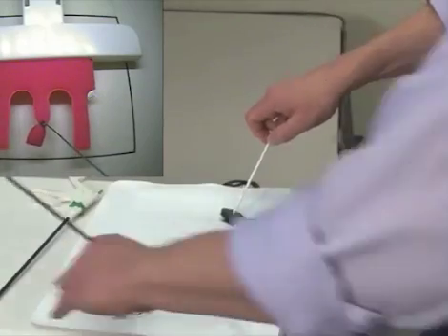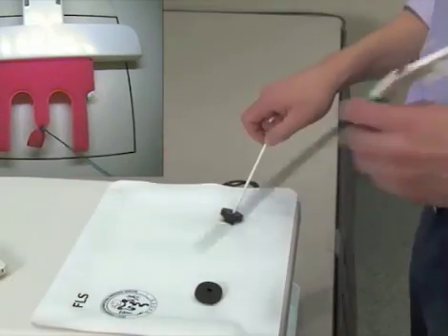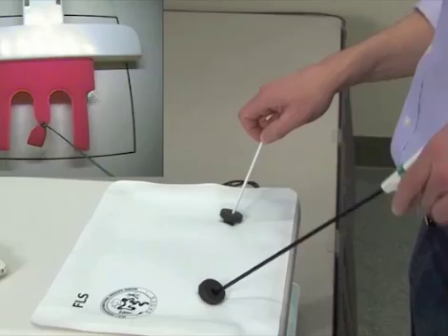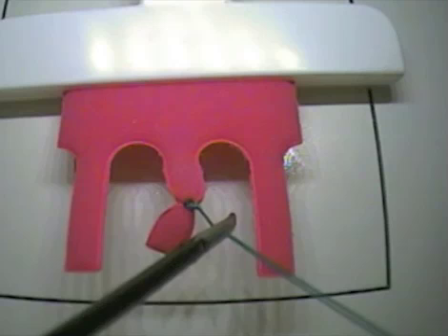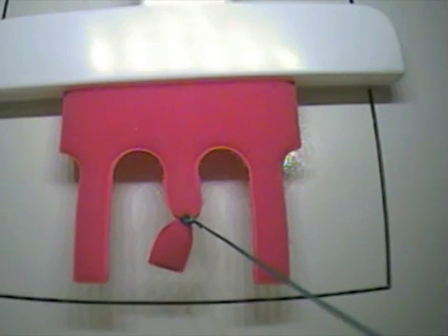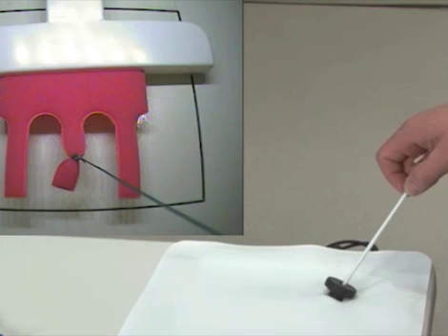Please note to use a grasper instead of scissors to grab the endo-loop material to simulate making a final cut, as you would during the endo-loop task during the actual FLS exam. Do not use actual scissors or shears as this will damage the reusable endo-loop, no longer making it reusable.